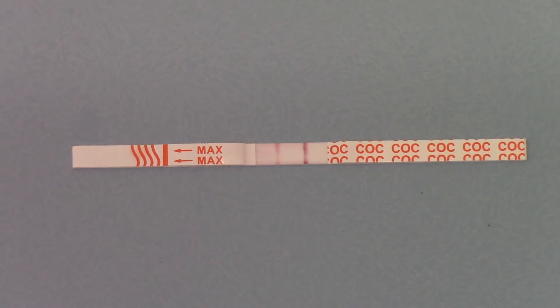This test will detect for a longer period of time where cocaine is being excreted from the urine. So if somebody has breached the 300 nanogram level in the urine sample, a traditional test would screen negative. If they were still over 150 nanogram concentration in that solution, we'd expect this to still give a positive indication of cocaine being excreted. Once the level drops below 150, this test goes to negative — it simply indicates cocaine being excreted at a much lower level than the traditional tests.